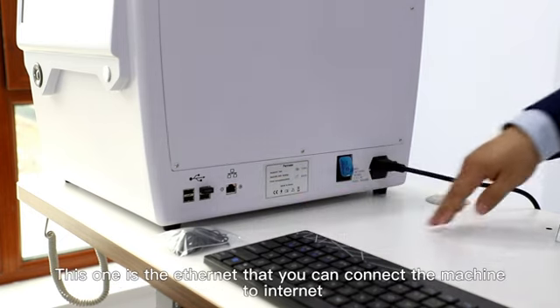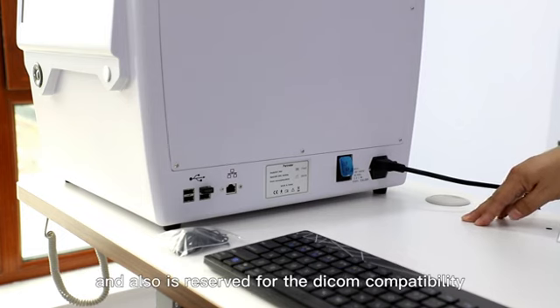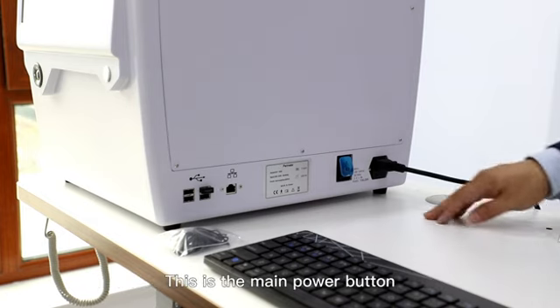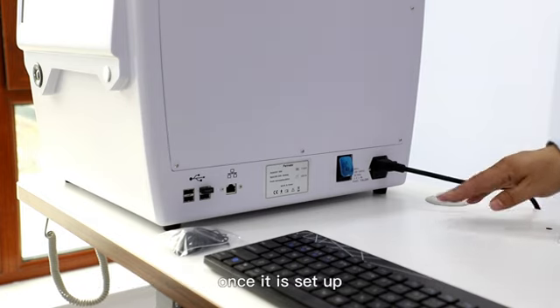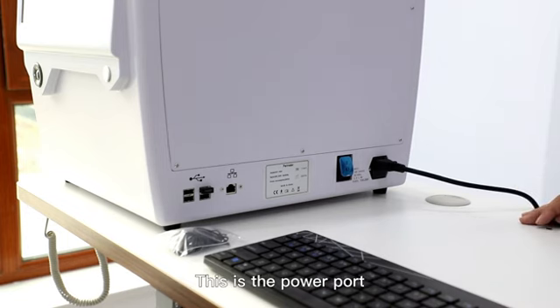This one is Ethernet, that you can use to connect the machine to the internet, and it's also reserved for DICOM compatibility. This is the main power button. Once it is set up, you just turn it on and leave it there. No need to turn it off again. And this is the power port.